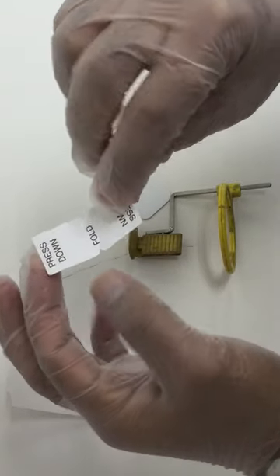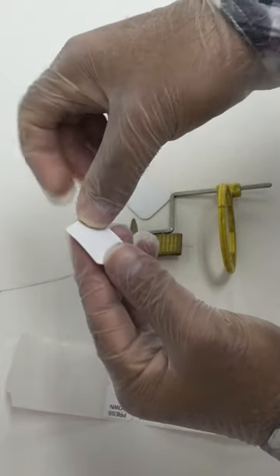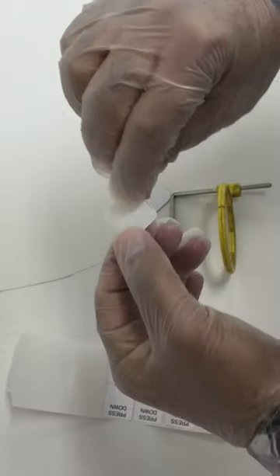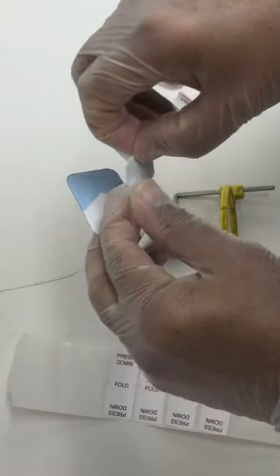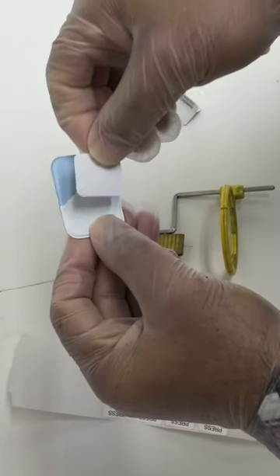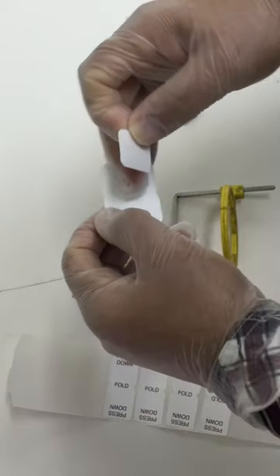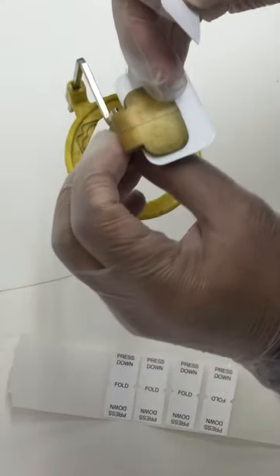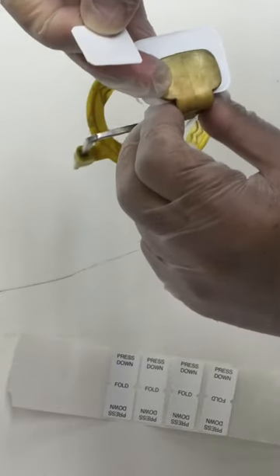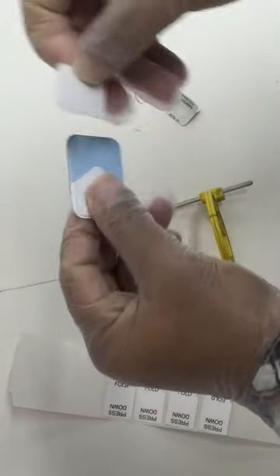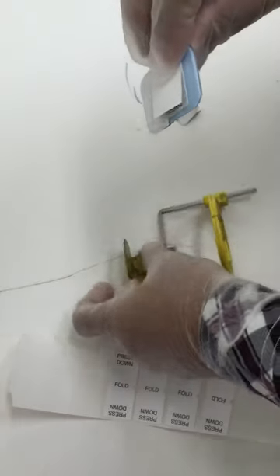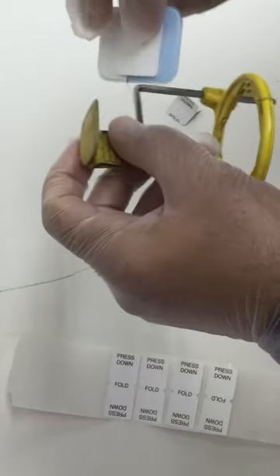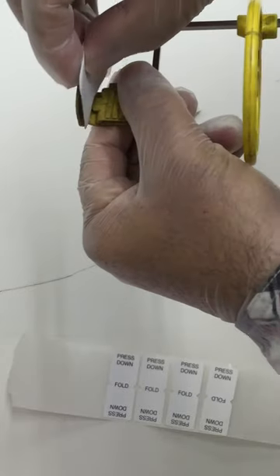You will bring the adhesive tab and fold it together in this way and put it on the back side of the film. Put it at the center on the back side of the film and then stick it to the holder.